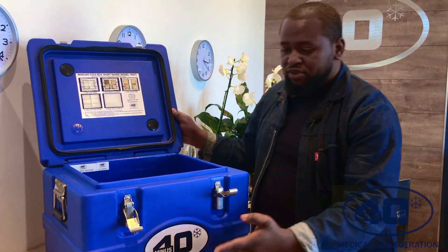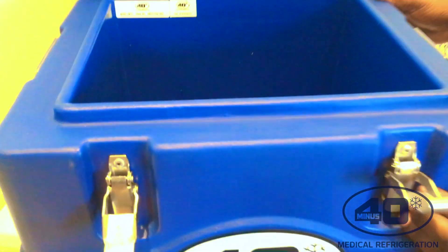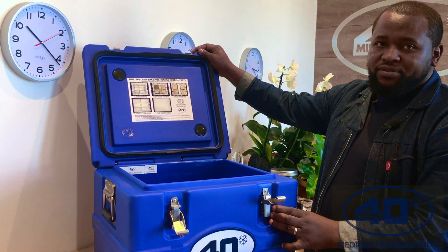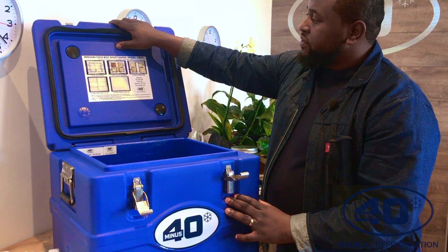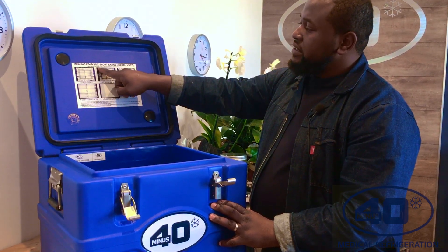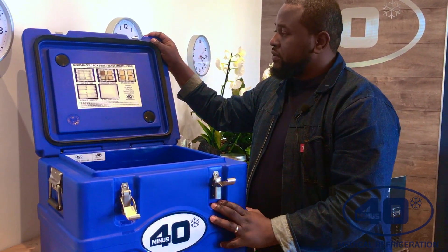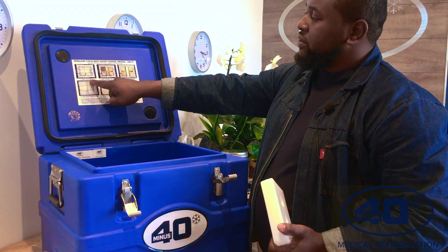You can see I've removed all the high-spec ice packs and you can see the inside of the 7-liter vaccine cold box. I will do a demo with the dummy vaccine box. You need to note that this vaccine cold box has been tested and it's rated cold life at 60 hours at 43 degrees Celsius with 24 frozen ice packs.